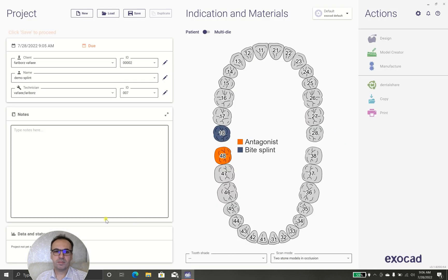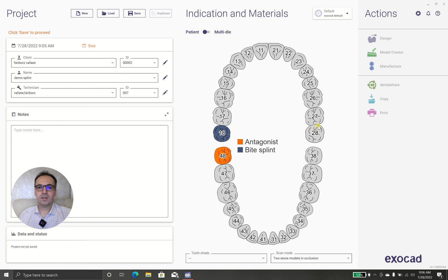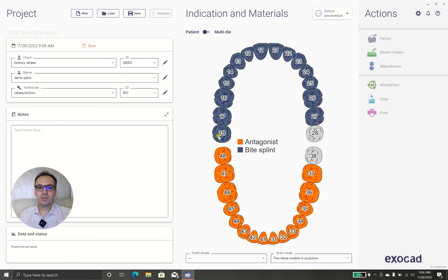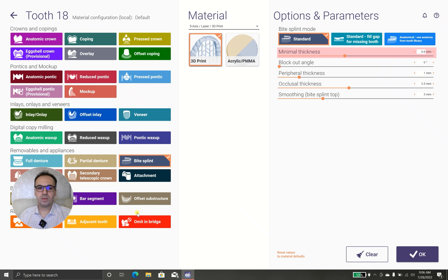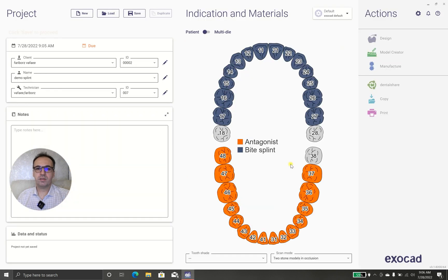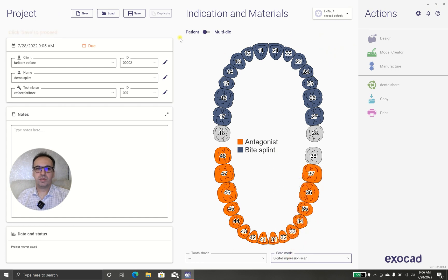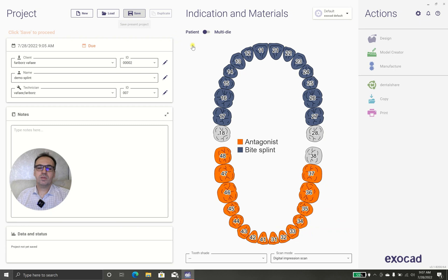Okay, and I'm going to design it, not this one, I clear it. Okay, and I have digital impression. Now I'm ready to go into design.